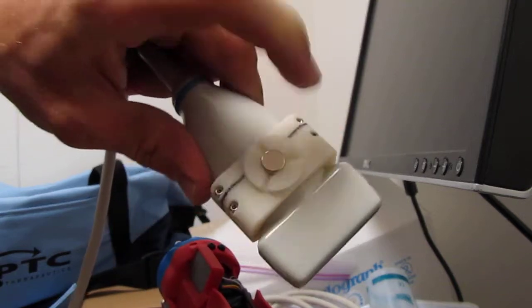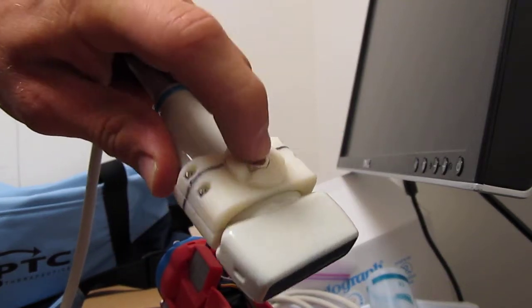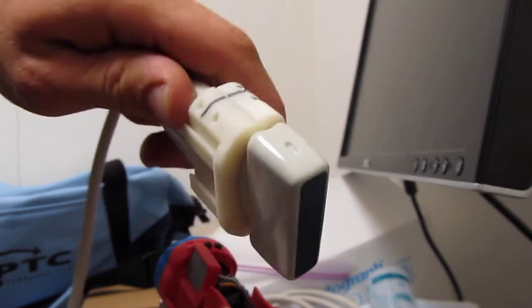Then you're ready to attach the camera and do the camera imaging. This clamp lives around the probe and can stay there.